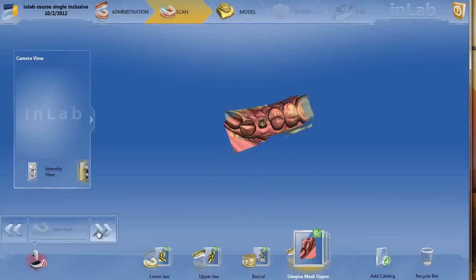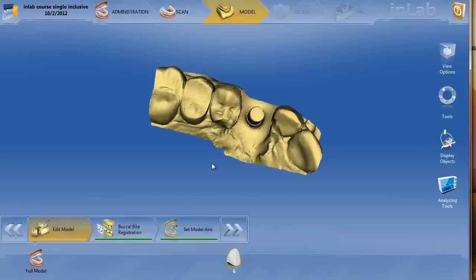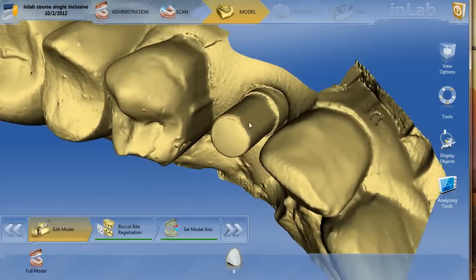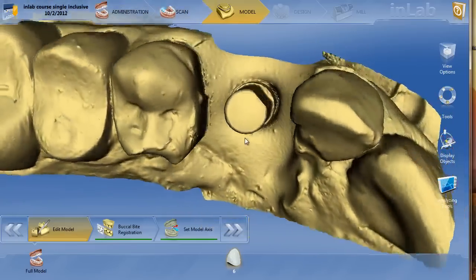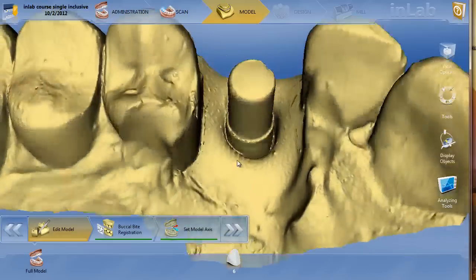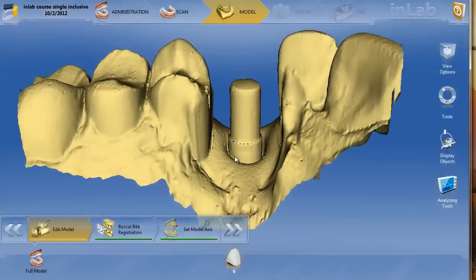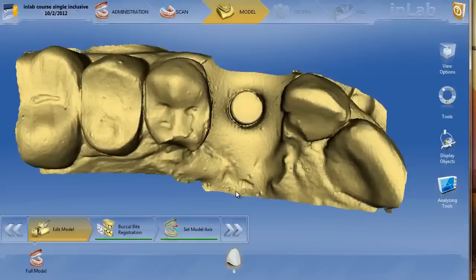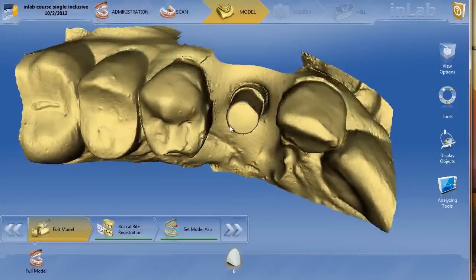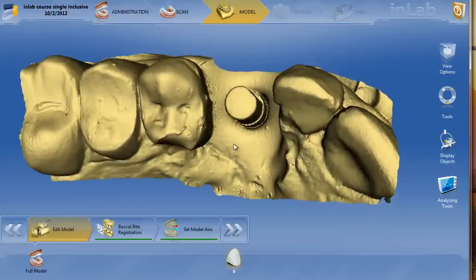In the initial model phase, you can see why the Glidewell 6mm tie base really works well. It has a very flat, parallel wall — it's a very parallel titanium base. So much so that if you look from the occlusal, it's very difficult to see the margins. My experience with this 6mm titanium base is that when you mill a crown, it's almost very difficult for it to seat all the way. I use the replace function in the edit model to go ahead and fill in the top of that. We've got many videos on using the replace function to fill in the top of the titanium base.